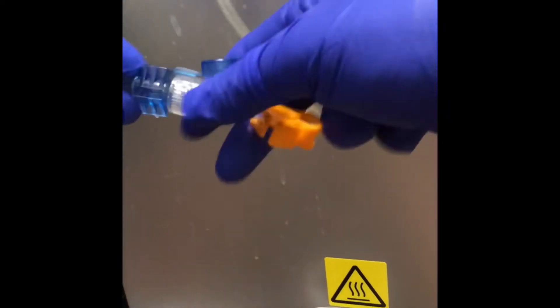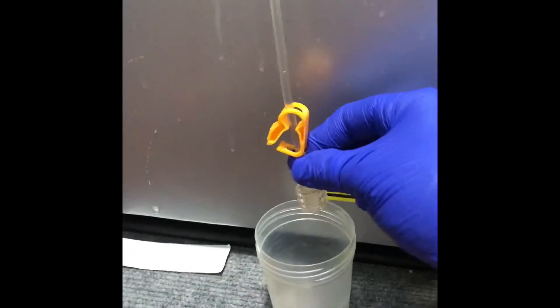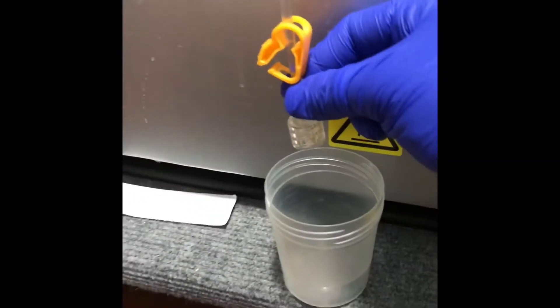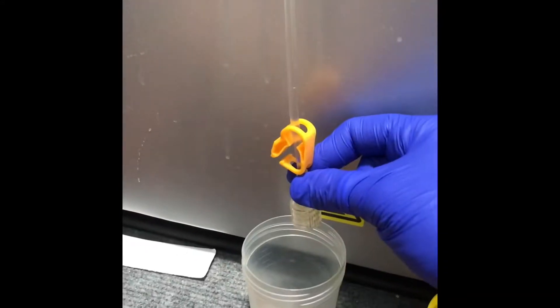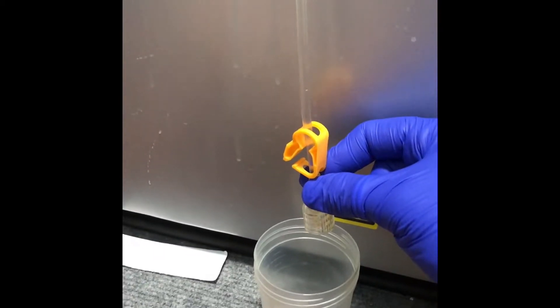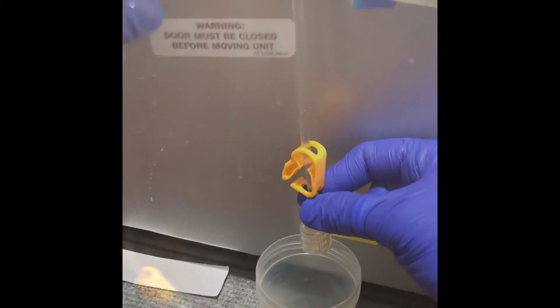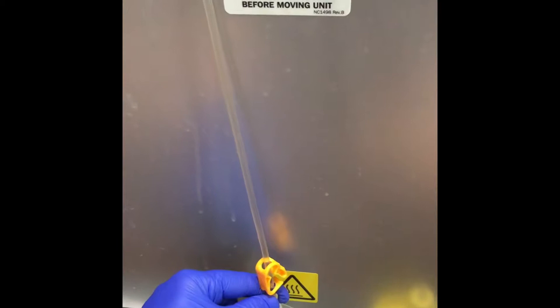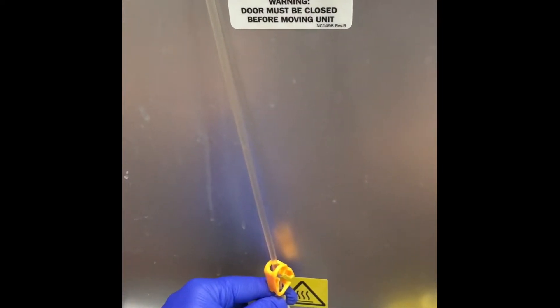So I am going to unhook, clamp, and wait for the other line and it will disperse through that line. The dialysis knows when to stop, so it usually fills to the top of the cup.